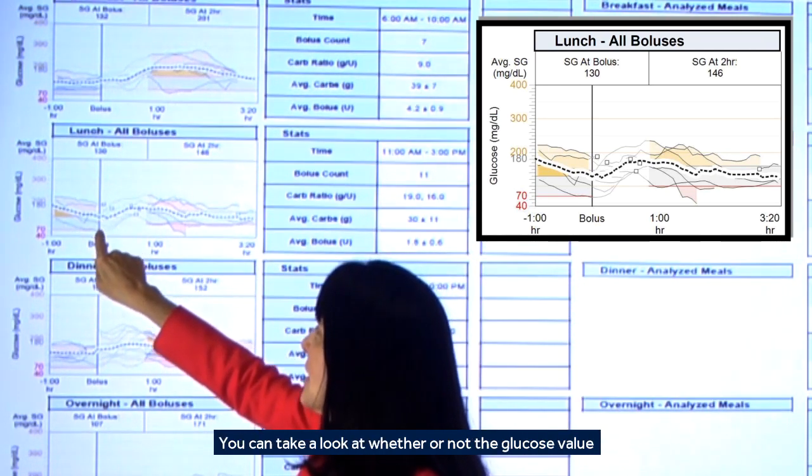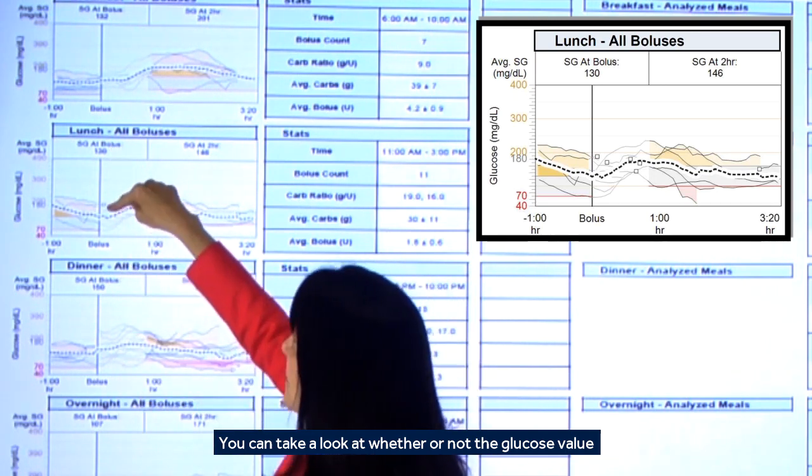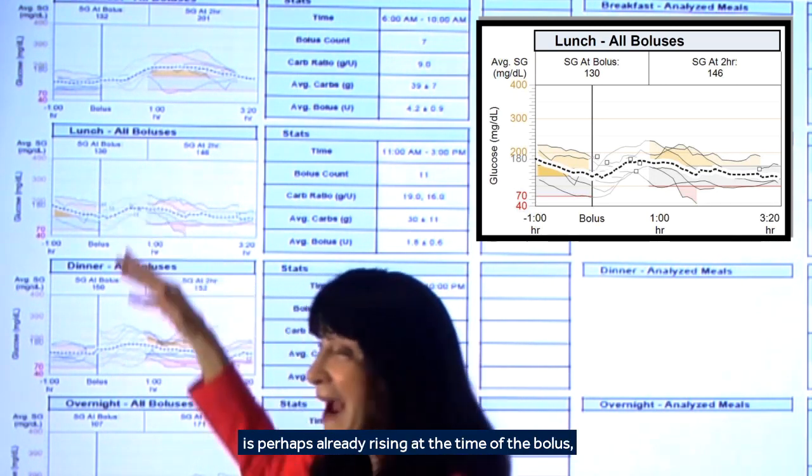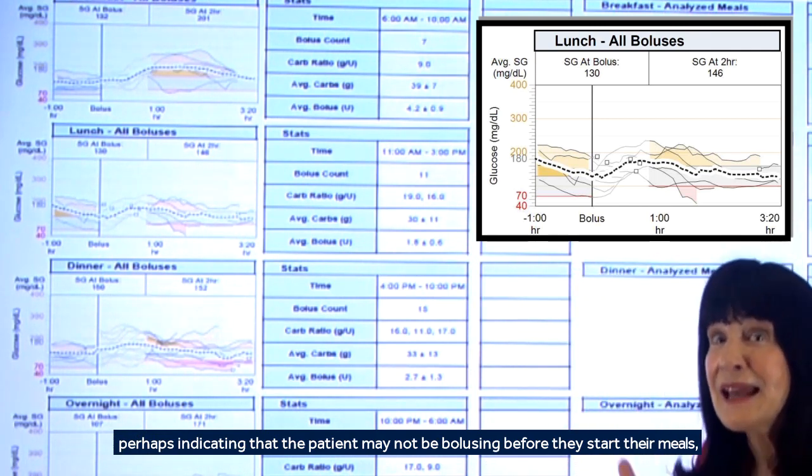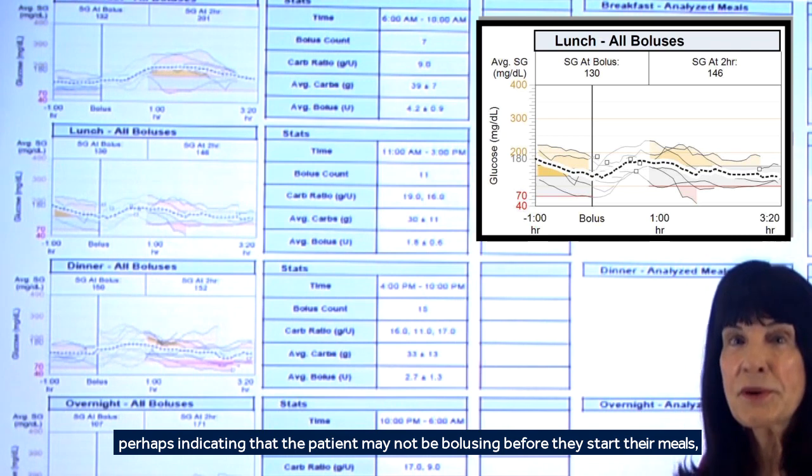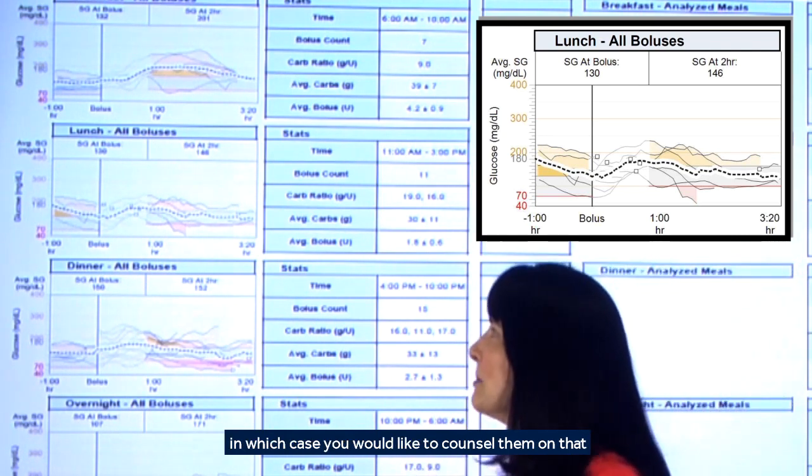You can take a look at whether or not the glucose value is perhaps already rising at the time of the bolus, perhaps indicating that the patient may not be bolusing before they start their meals, in which case you would like to counsel them on that.